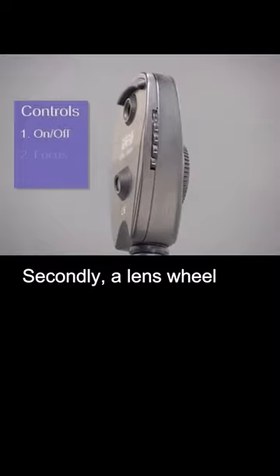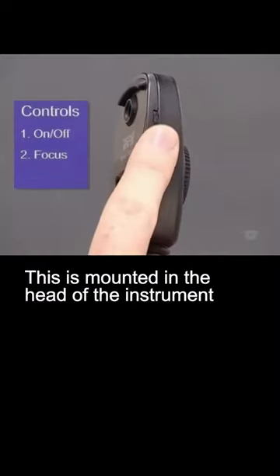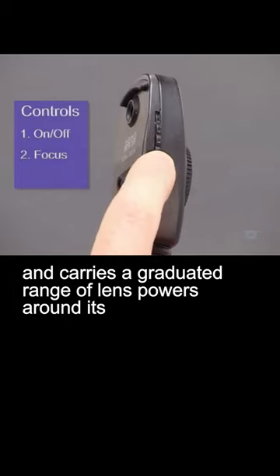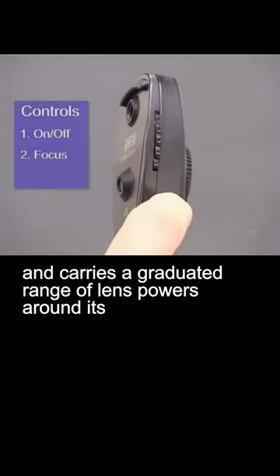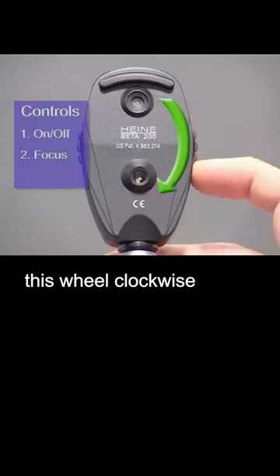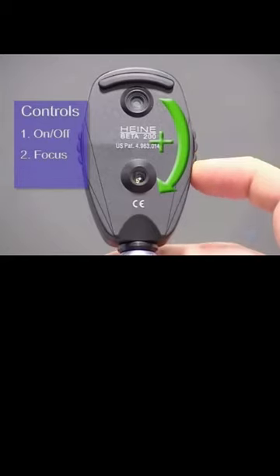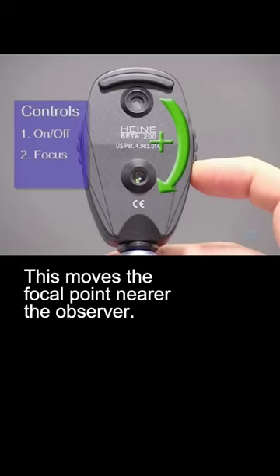Secondly, a lens wheel which adjusts the focus. This is mounted in the head of the instrument and carries a graduated range of lens powers around its edge. Dialing this wheel clockwise increases the lens power, which moves the focal point nearer the observer.